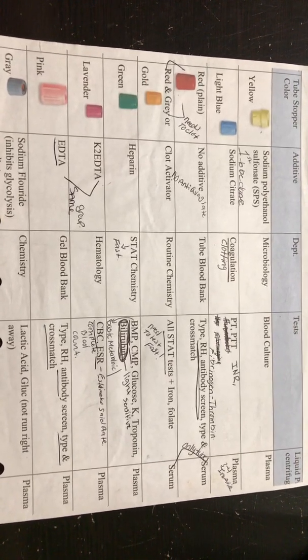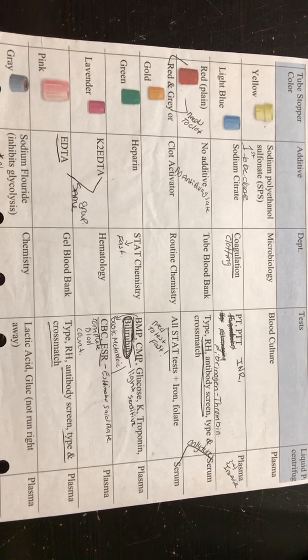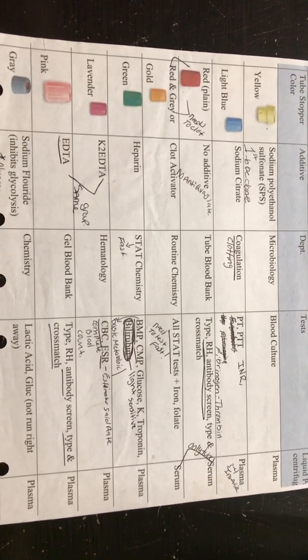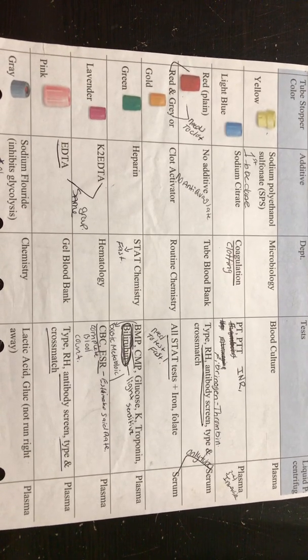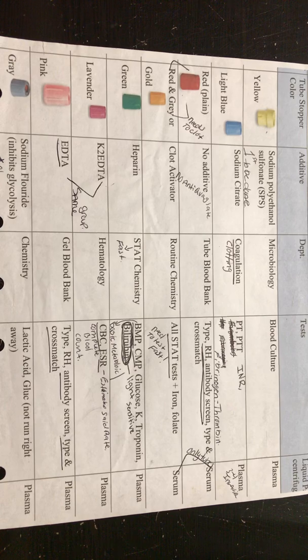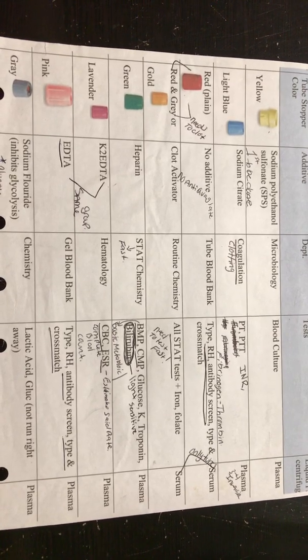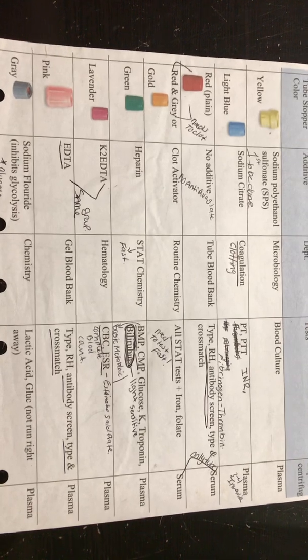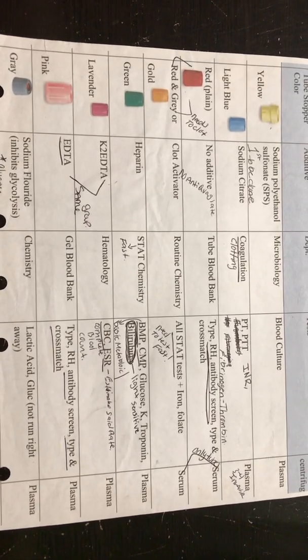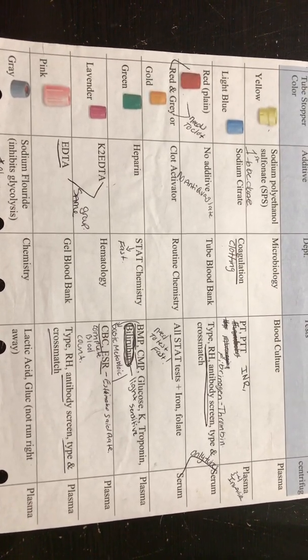Hi guys, it's me, your instructor Cheryl Davis. I just want to go over this sheet for a minute because this is very important for our CMA and our phlebotomy. Especially phlebotomy - you will be doing this every day. It does not ever go away. If you look at your left, you have your tube stopper colors.